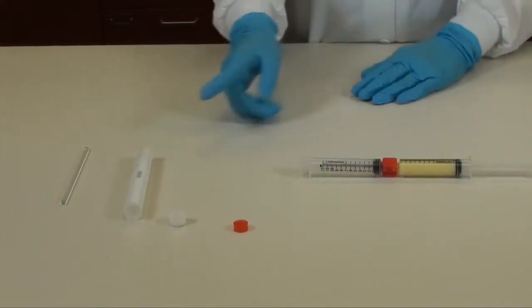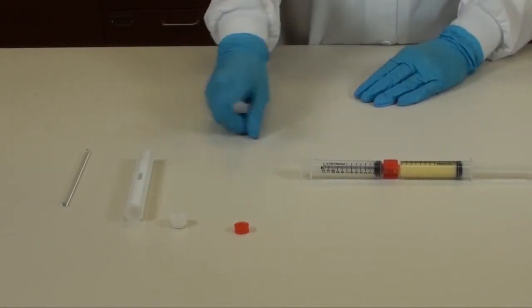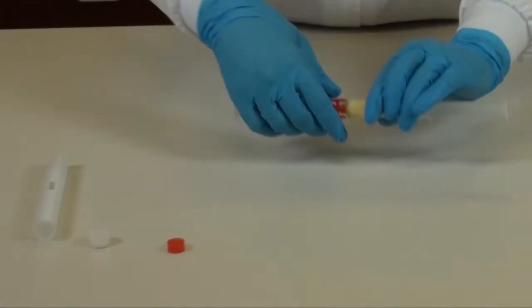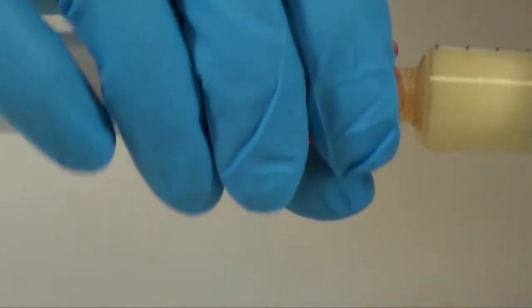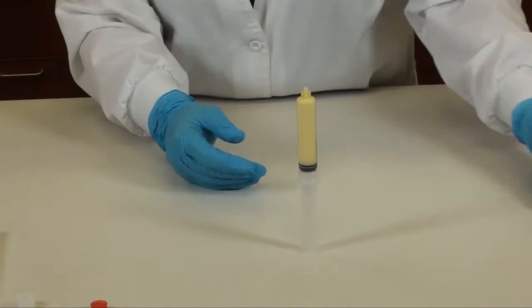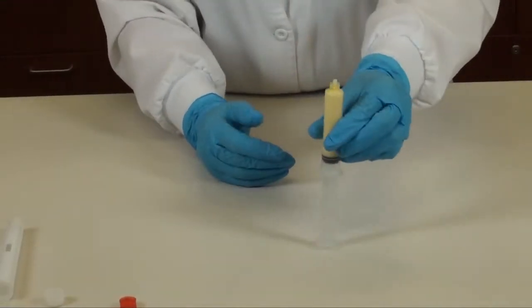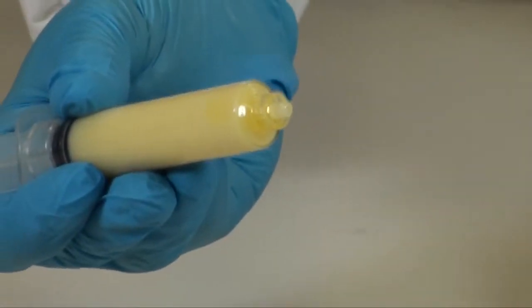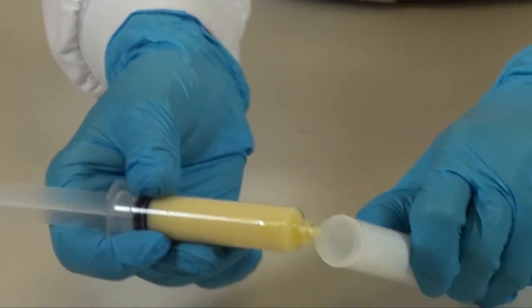Okay, now we want to go ahead and add our finished PLO gel into the AccuPen. So detach the empty syringe and the syringe connector and we're going to carefully add the PLO gel into our AccuPen, the empty hole.